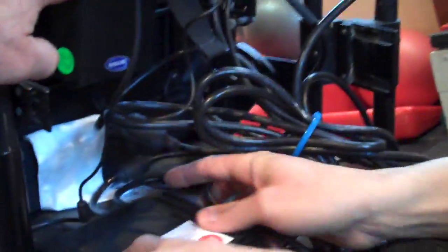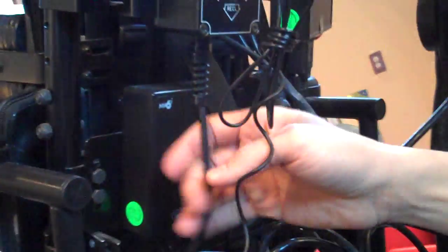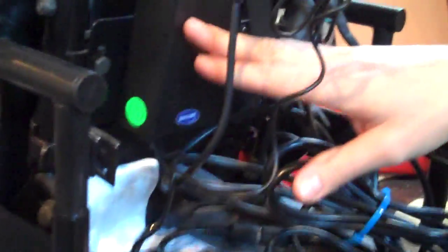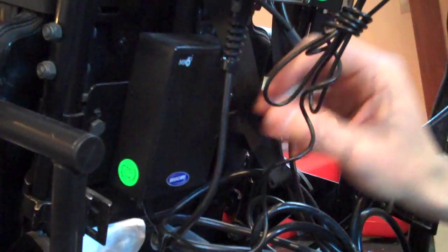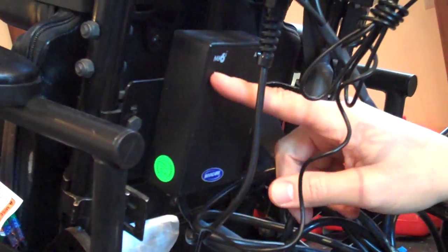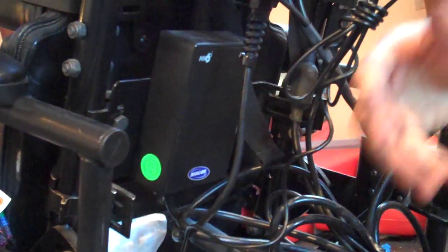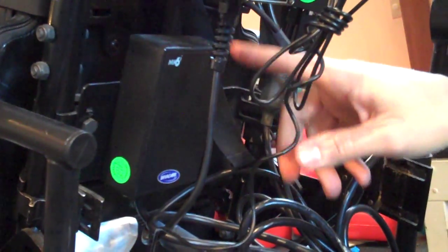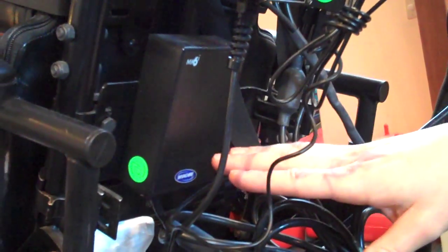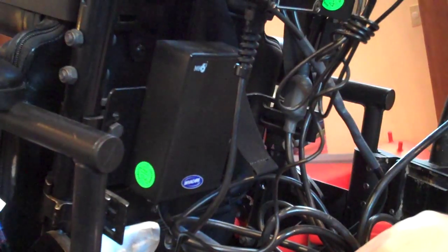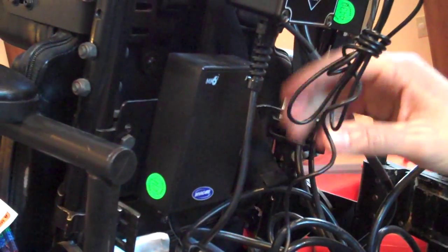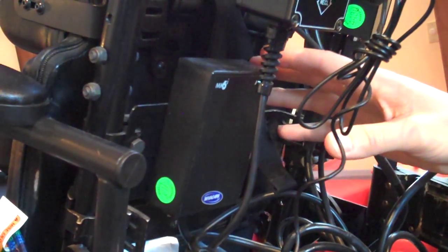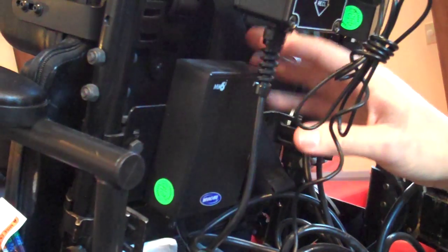So this Invacare box right here—it says MK—are those the electronics? Well, no. This is a Mark 6 auxiliary box. You have to get a Mark 6 because this is a Mark 6 chair. This is the auxiliary box.